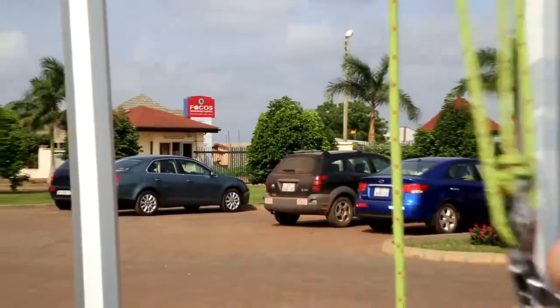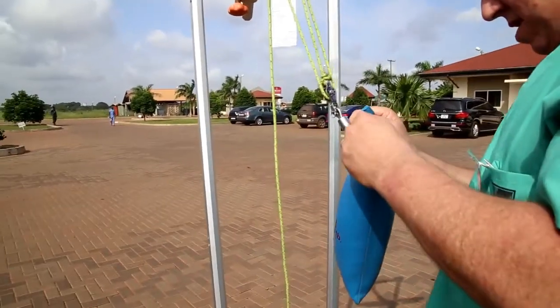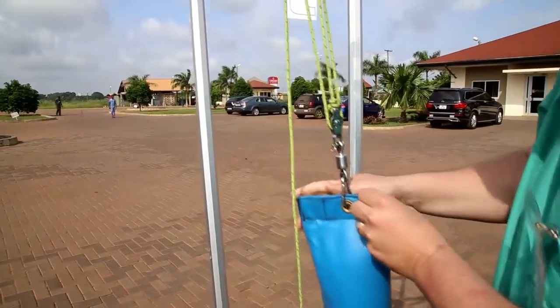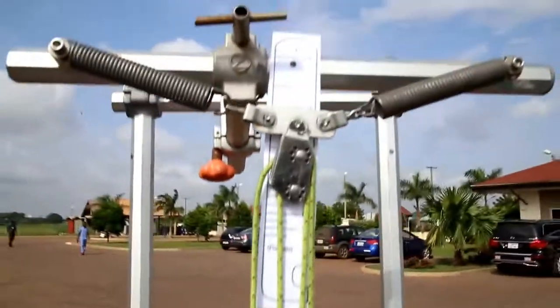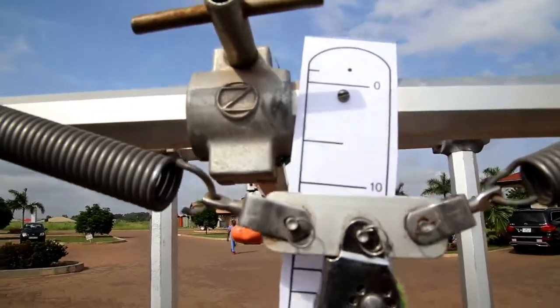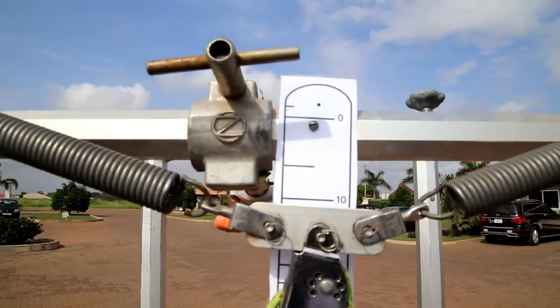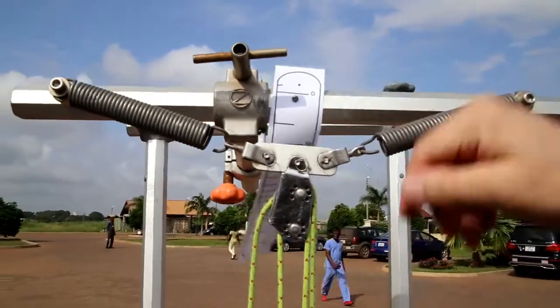I can check it further by putting a ten pound bag on there. Now I've got ten pounds on here — I should be at the ten pound mark on the scale. And I am at ten pounds. So my scale is verified at ten pounds. So I know zero, I know five, I know ten.